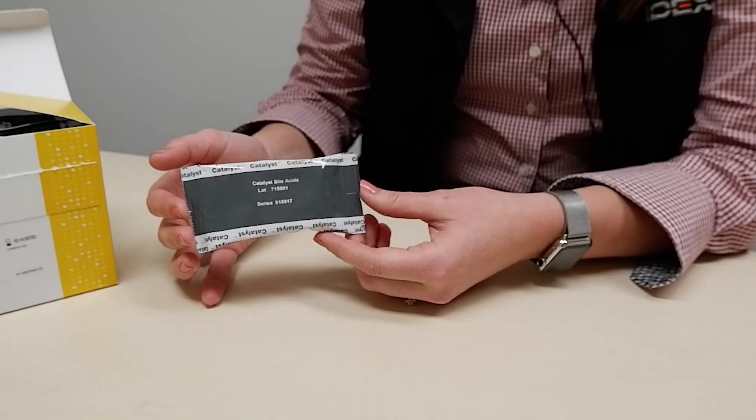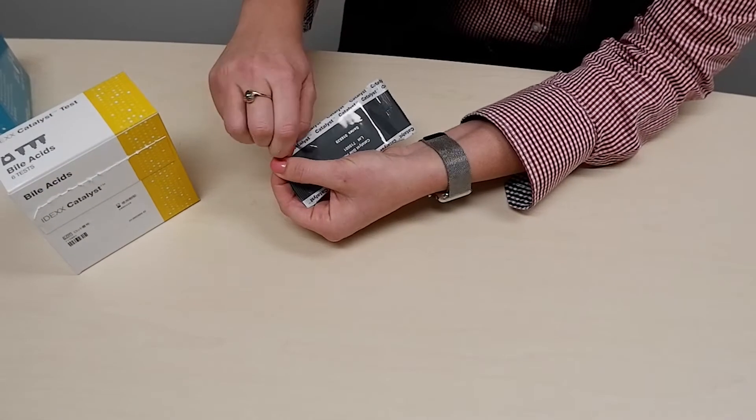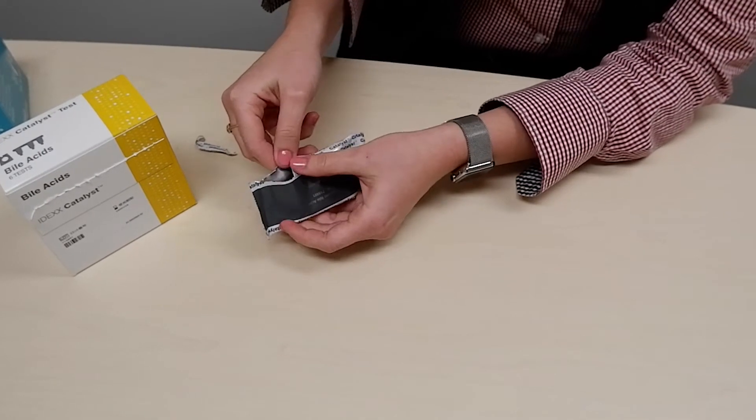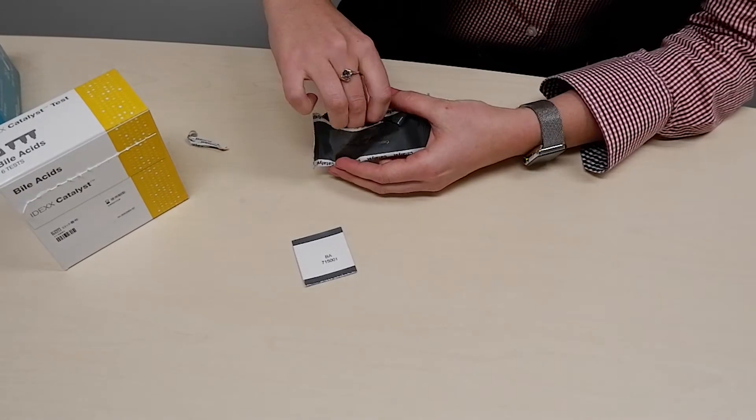The bile acids tests will arrive as cold goods to your clinic and need to be stored in the refrigerator. Inside the catalyst bile acids packaging there is a single slide and a reagent wash.